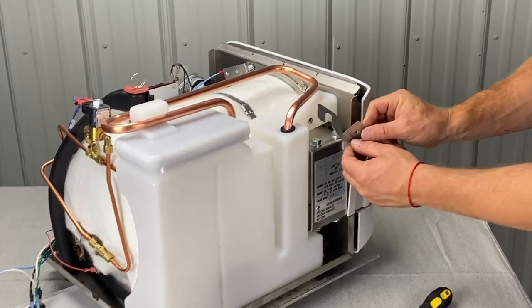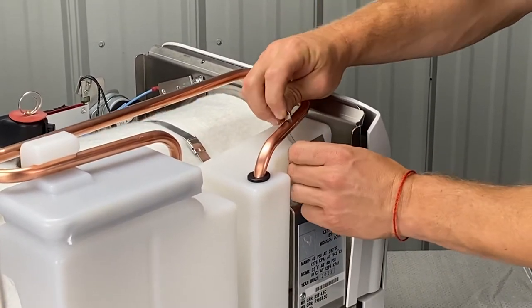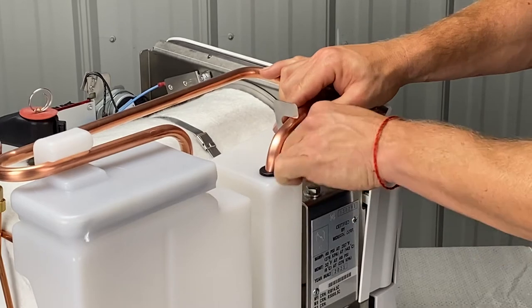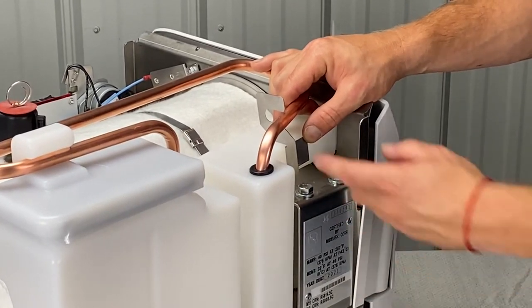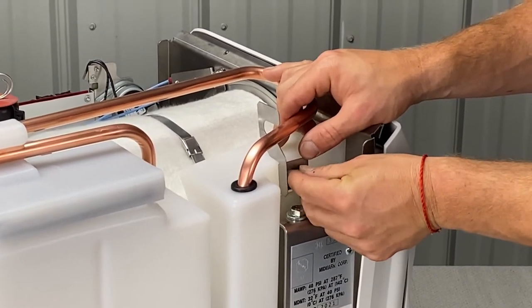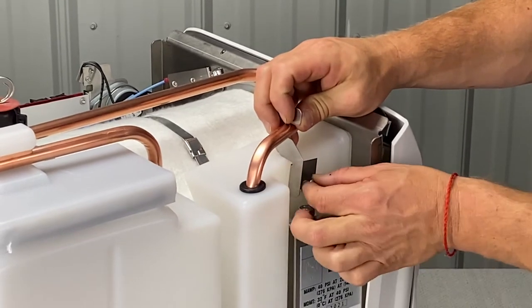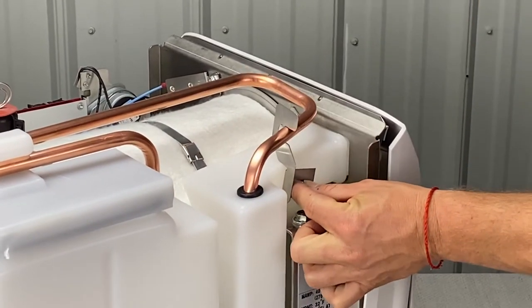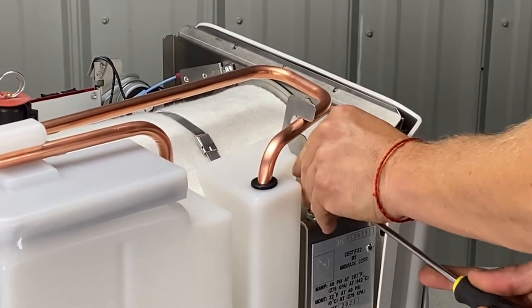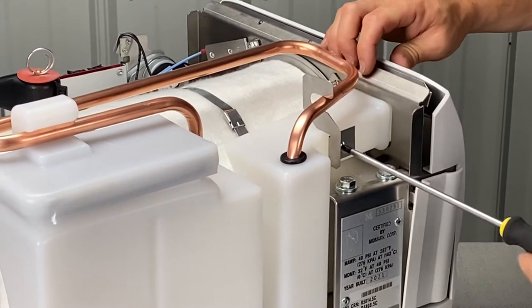This is the copper tubing bracket, it goes like this. Make sure when you take this apart, you save this screw — it's specifically for this part of the reservoir. That's a Phillips screwdriver. It can be annoying the way they set up sometimes. Don't lose the screws, don't drop them down in. Screw it into place here, get it through the hole. We did it — you can screw that in place.